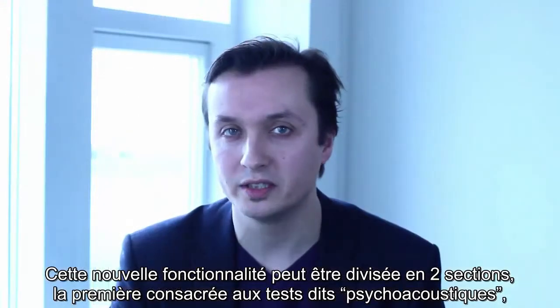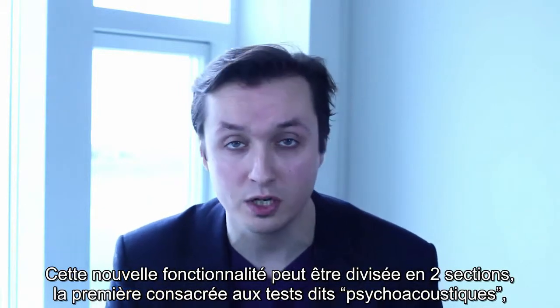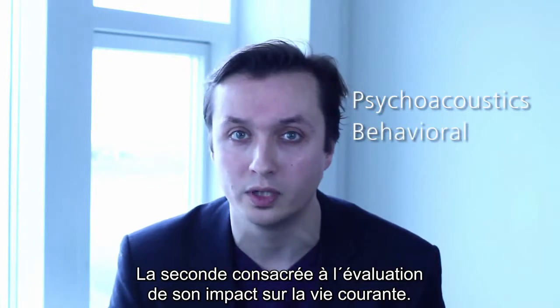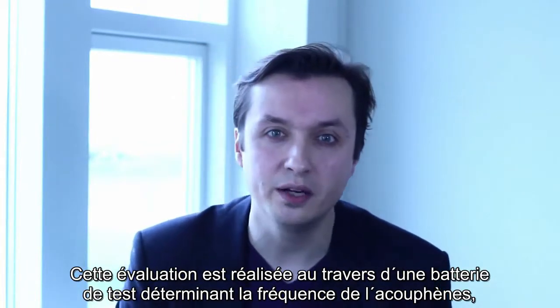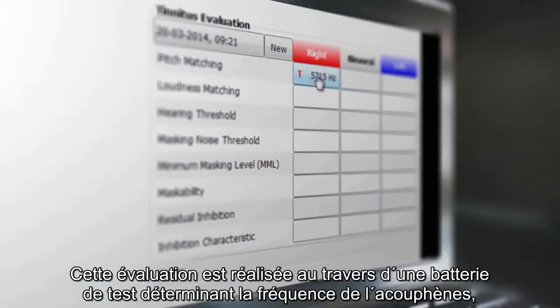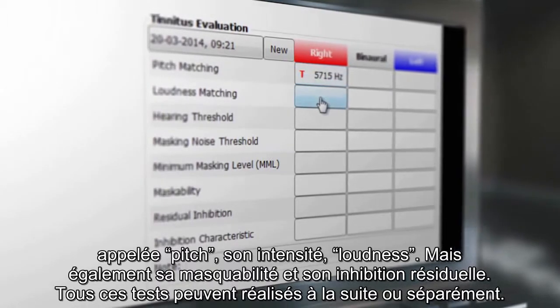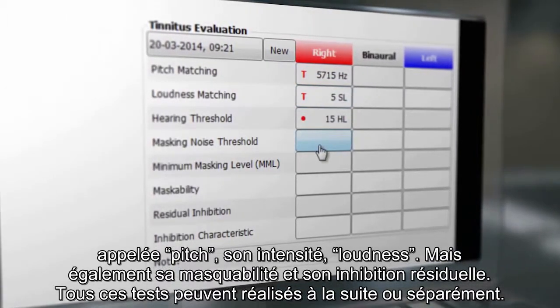The new tinnitus test modality can be divided in two sections. The first one is the psychoacoustical test evaluation. The second one is the behavioral evaluation. This test is performed through a test battery which determines the frequency — known as the pitch — the level, also called loudness, but also maskability and residual inhibition.